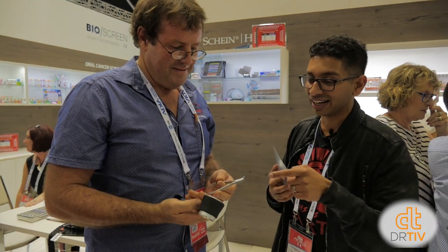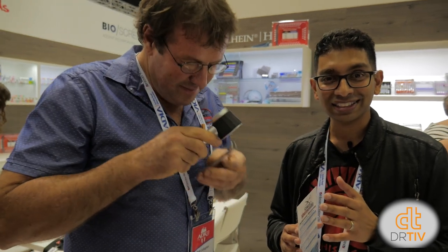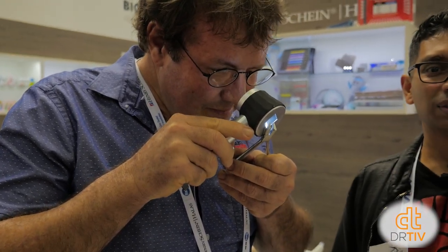He's got this amazing magnifying glass he can look through to see what needs to be sharpened — he can detect which blade needs work and sharpen accordingly. So rather than throwing out all your instruments, a cheap way would be to get them sharpened. I'm going to send Bob lots of my instruments. He's in northern New South Wales — express post to him and about five days to get them back.